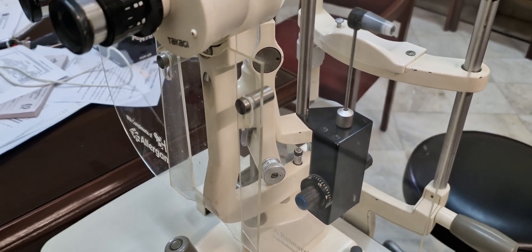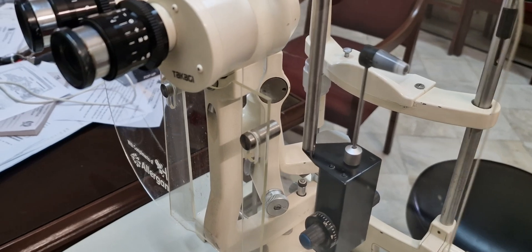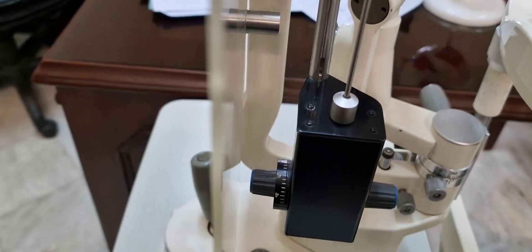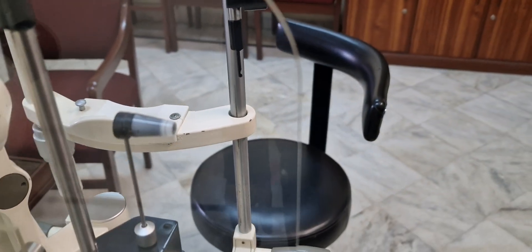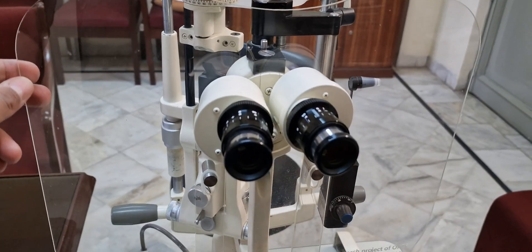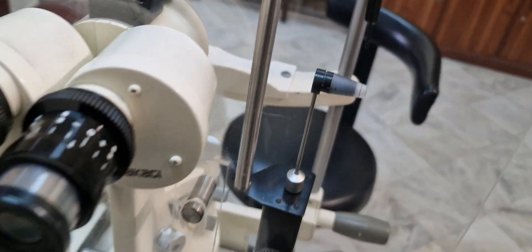On this side there is a hanging portion called the applanation tonometer. This tonometer has a numbering that is multiplied by 10 to get intraocular pressure in millimeters. There is a head of the applanation tonometer — the inner edges of both mires should meet to give the accurate intraocular pressure. This is a protective shield used to avoid infection or cross-infection.